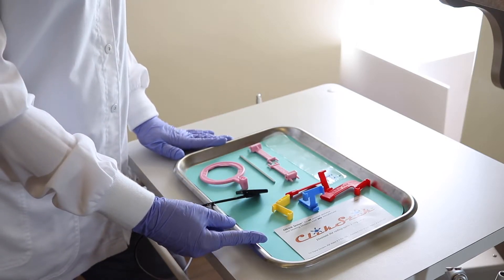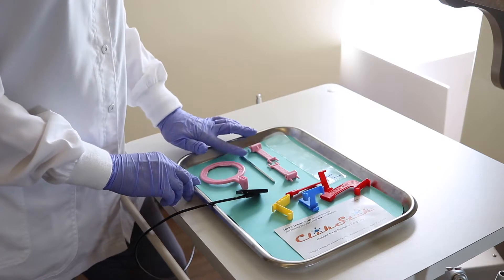It is called the click stick. The click stick comes with a ring, a rod, and two positioners.